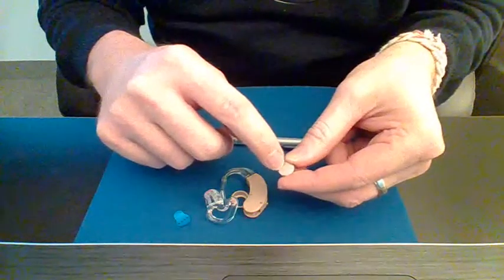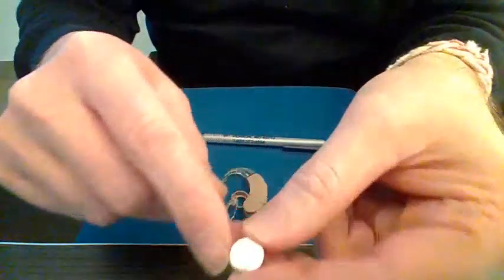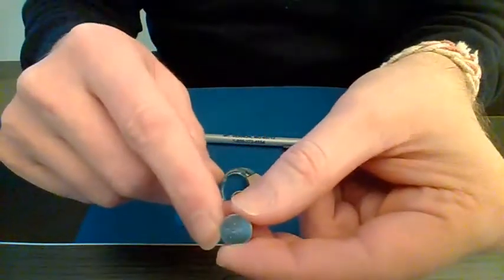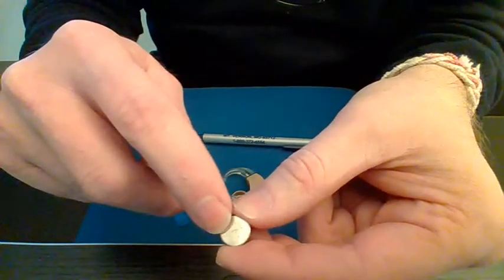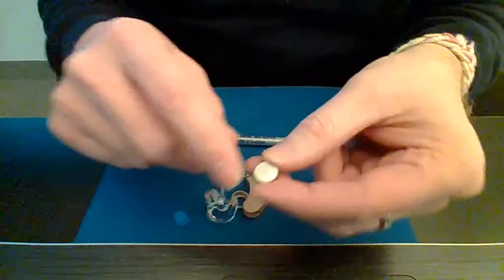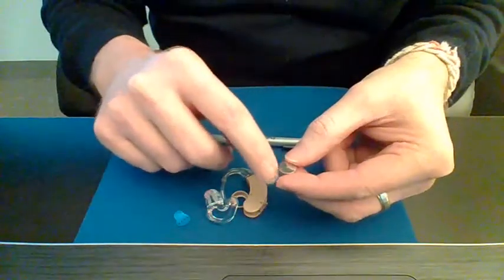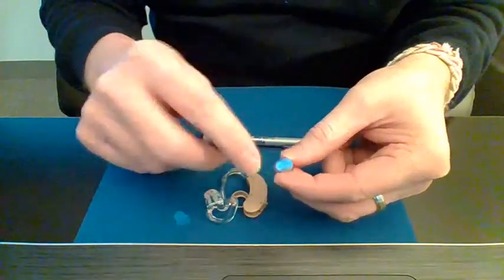And sometimes you probably can't see it here, but maybe if I move it up real close, you can see there's a little bitty plus sign right there. So that tells you that it's the top of the battery.